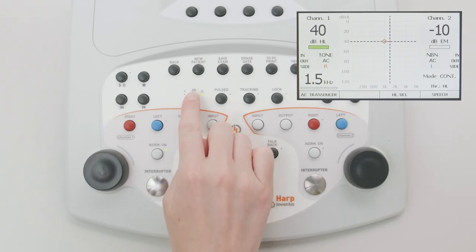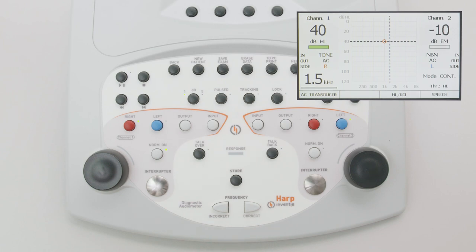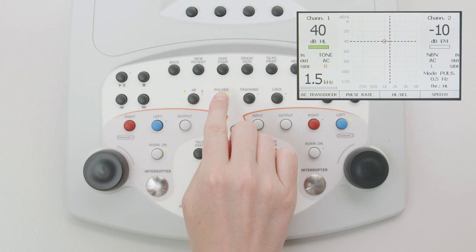At the top of the keyboard are four buttons controlling functions common to both channels. The step decibel button is used to select the incremental step for the attenuators, which can be one or five decibels. Pulsed allows the selection of pulsed mode for presenting the stimulus signal.